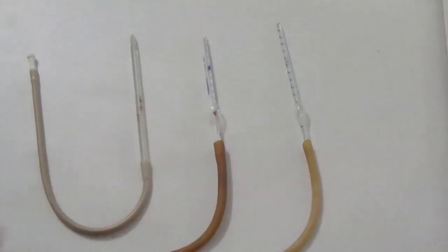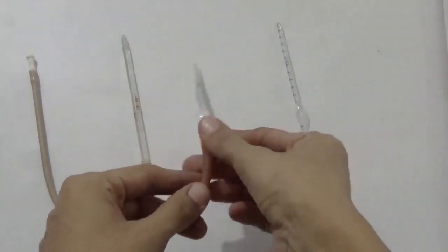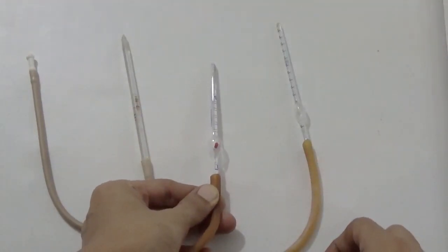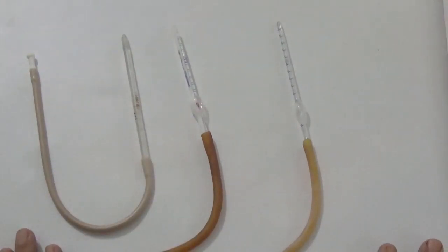Hello everyone. Today we'll discuss various pipettes and how to identify different types of pipettes, starting with the RBC and WBC pipette. So what do we mean by pipette? It is a glass capillary pipette which is used for dilution of blood. A pipette is used to dilute the blood with a suitable fluid in an accurately known proportion. RBCs are more numerous than WBCs and therefore they require more dilution.